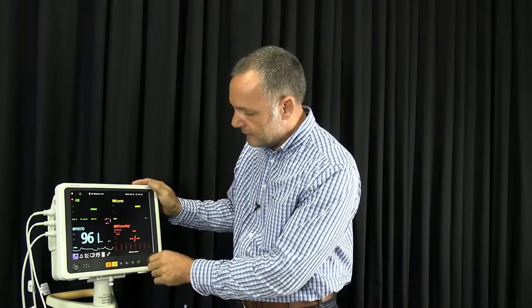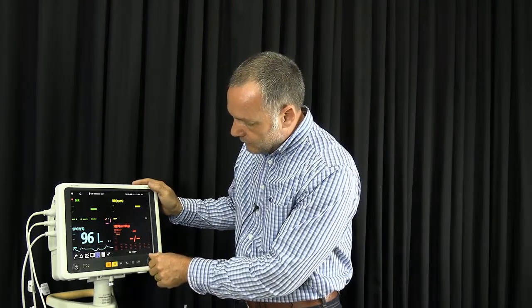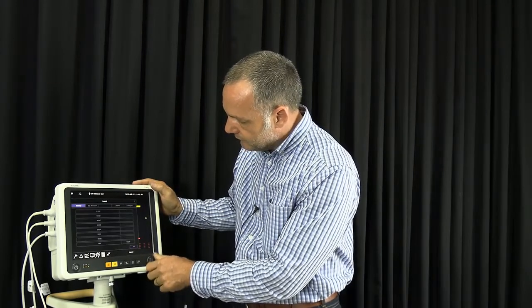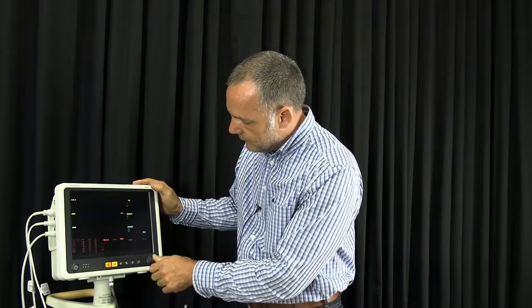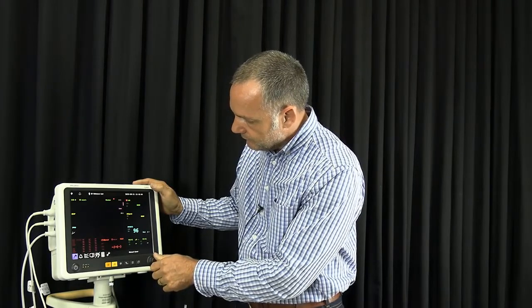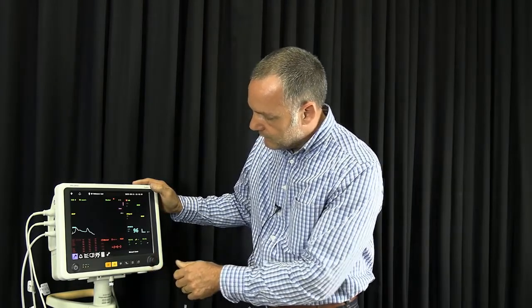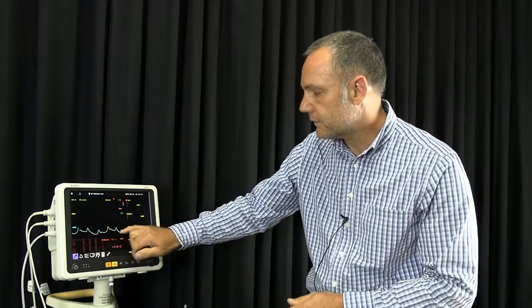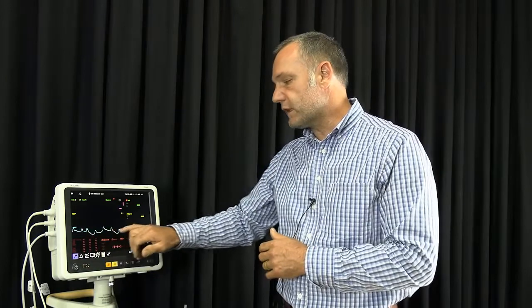What I want to do now is change the screen on the monitor because there's something I want to show you which I cannot see so clearly here. So I'm just going to go to my normal screen. Just wait for the signal. You can see this baseline. That is what I meant by saying we've added the respiration artifact. So this baseline drift here corresponds to the respiration rate of the patient.